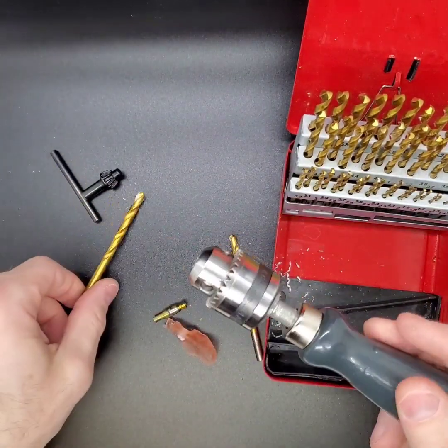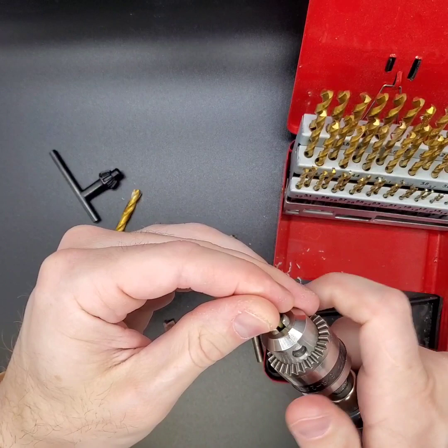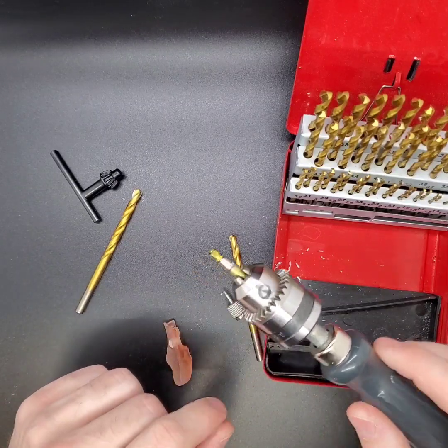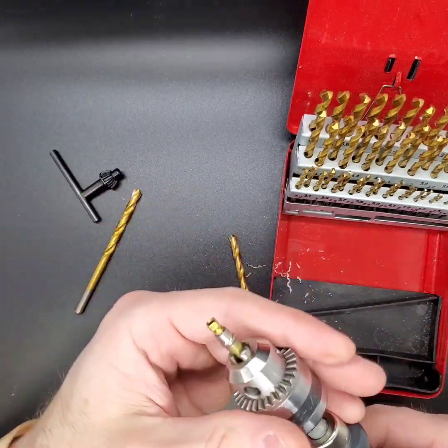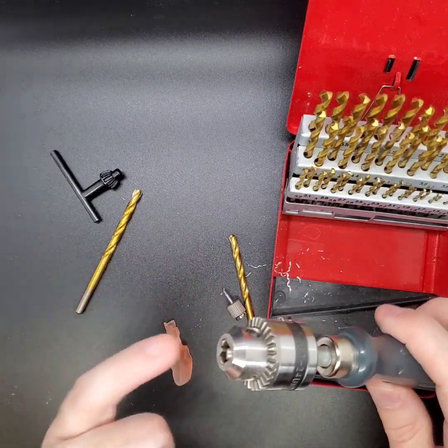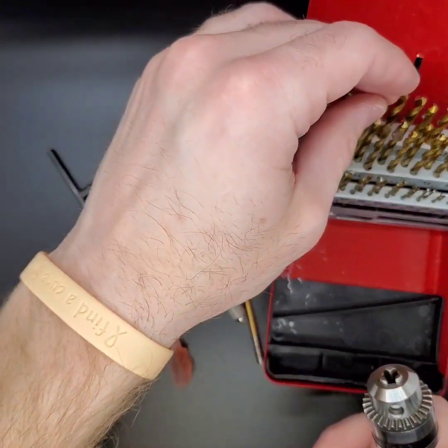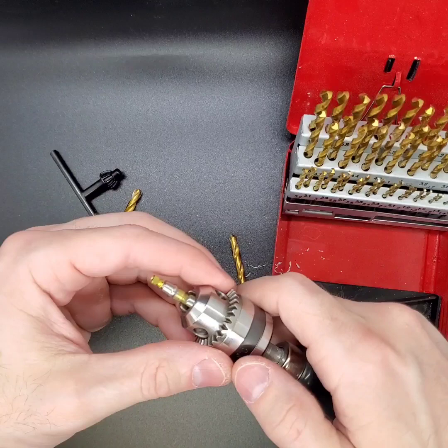Here's the other added benefit. Here's an implant analog with an abutment attached — I can just lock this on here and I've got an analog holder. You can buy analog holders from implant companies; I have one that cost me $80 to $90. But this is $13 versus $90. What's important is that smaller hand drills often only have a chuck size up to 3 millimeters, but this $13 one goes up to 6 millimeters in diameter, which matters because guide tubes can be over 5 millimeters and analogs themselves are around 4.5 millimeters. Cheaper ones under $12 to $13 won't be big enough.